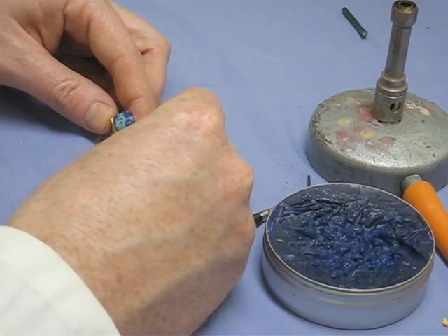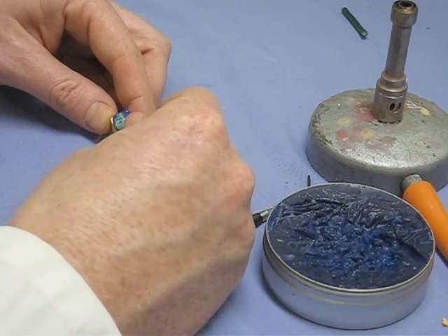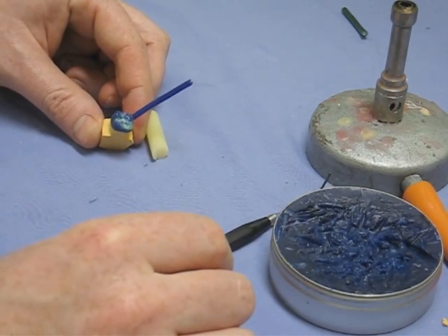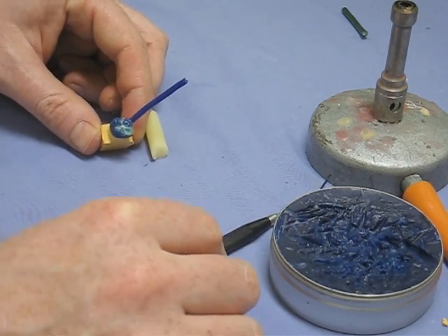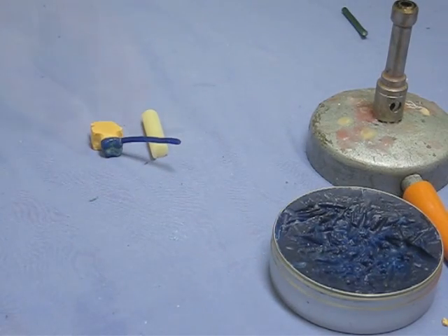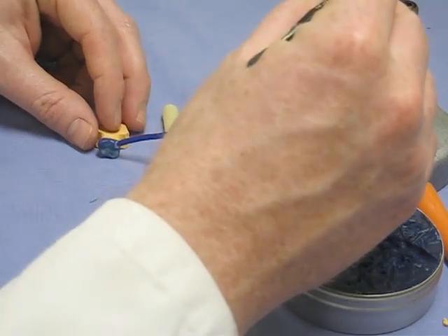It seems a bit counter-intuitive to sprue to the bit that you've just spent the last probably 20 minutes making it look lovely. But when you see it in the moulds coming up a bit you'll see why it's been put there.